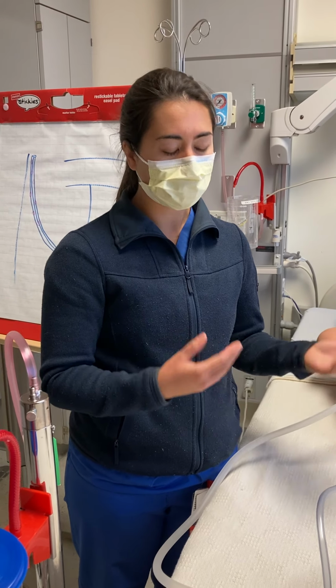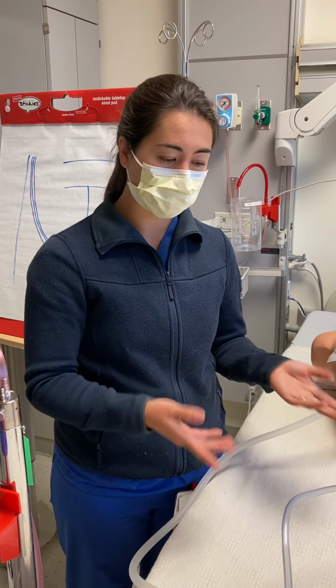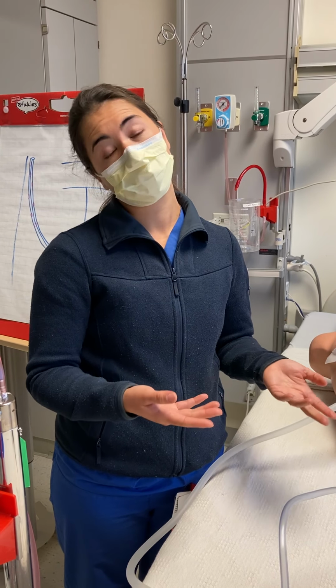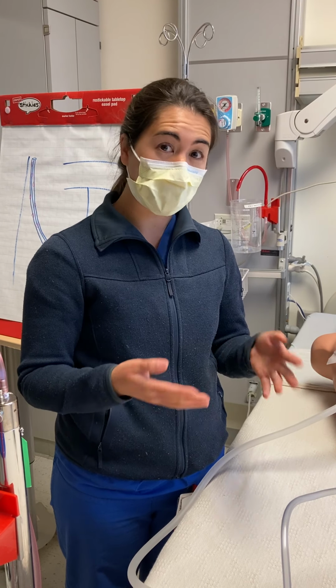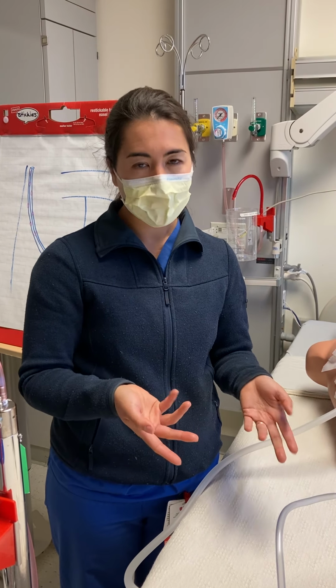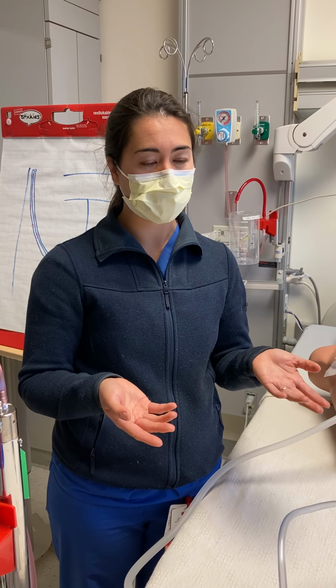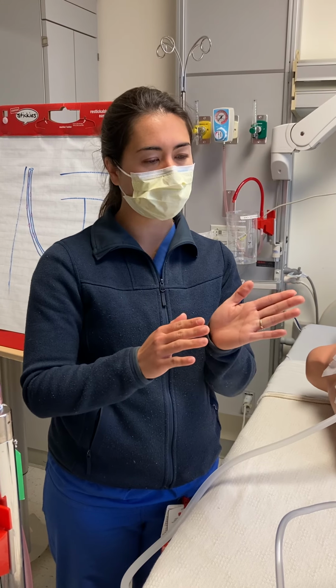And again, it's about the trends in terms of the fluid output, and the same thing with the air leak. Just to mention, if someone had an air leak and it goes away after something like a lobectomy, we expect that because things have probably healed. If they didn't have an air leak and a new one starts up, that could potentially be an issue, but again, it's about the context, because sometimes people have very small air leaks.